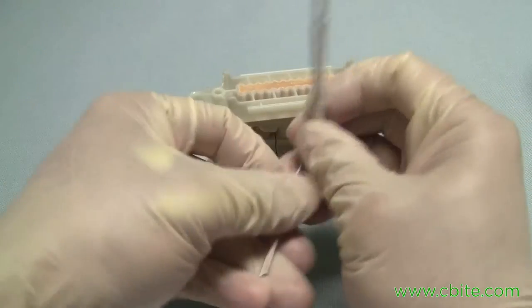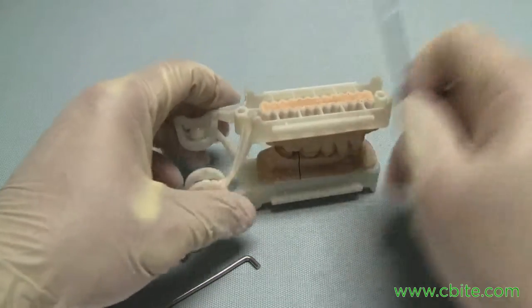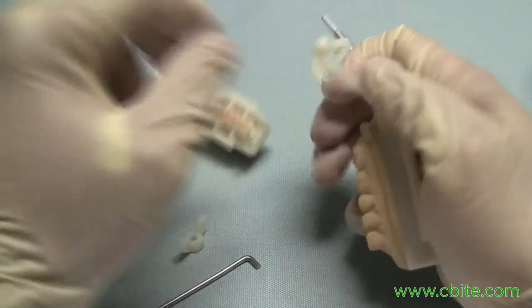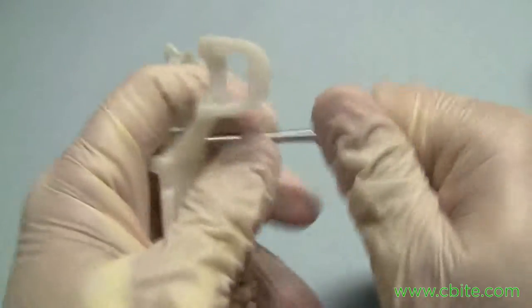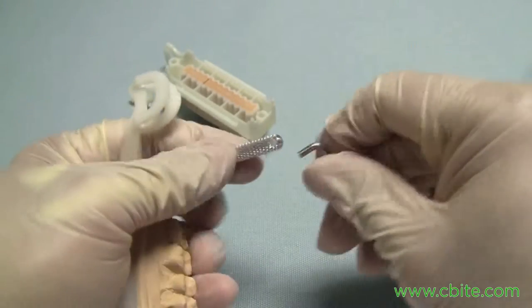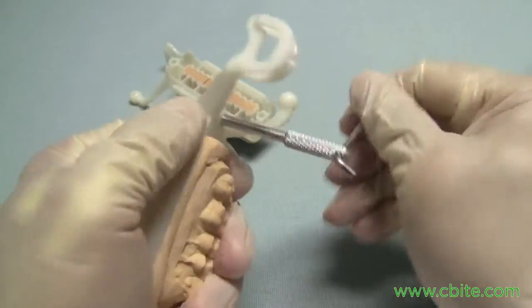The way to do this is to install the pin on the top unit. There are holes in the back of the articulator covered by a membrane. All you need to do is push down on that membrane. It's a self-tapping design, and this is where you use the wrench — put it through the hole to get the leverage to start creating the threads in the backstop hole.